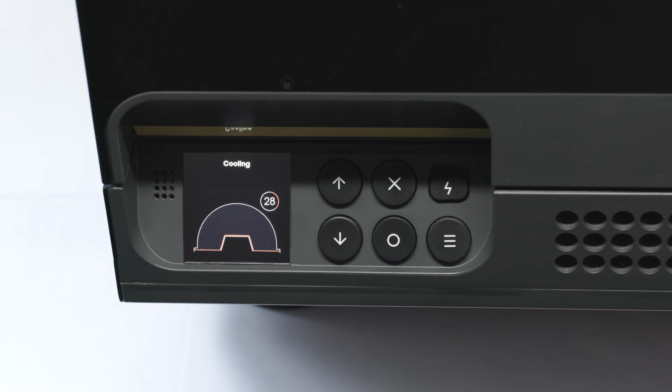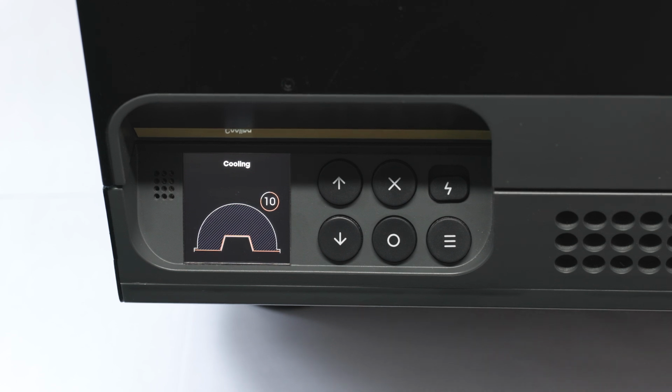So we're now in the cooling period of the machine. And again, you can change this to be whatever you want. You can actually open the machine at this point. All of the pressure from the dome has been released to atmosphere. So you can open it now and actually remove your forms if you so wish. If you've got 2 reducing plates, this is a really good way to increase cycle time.